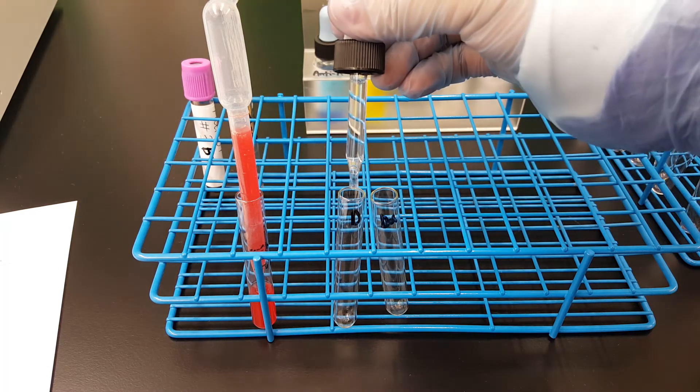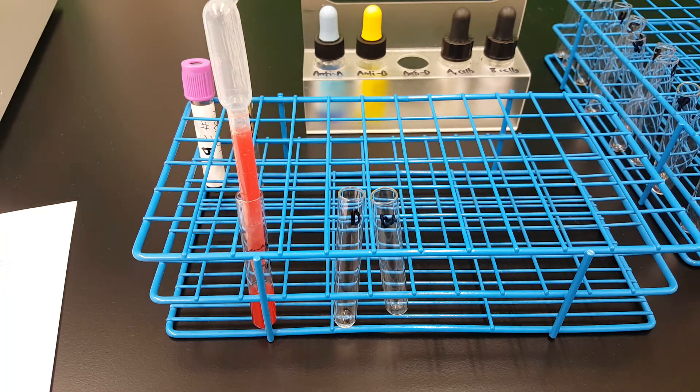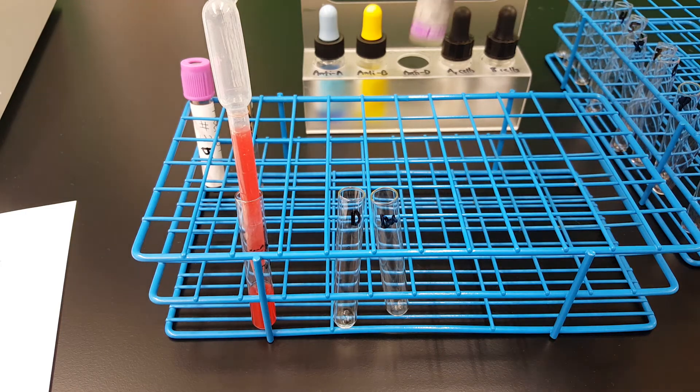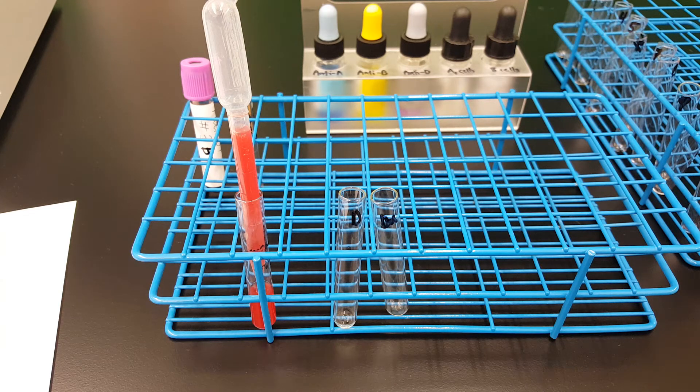You would have just saved the D that you had before, or you would have run it next to the D during testing. But again, you really only do this test for donor units.